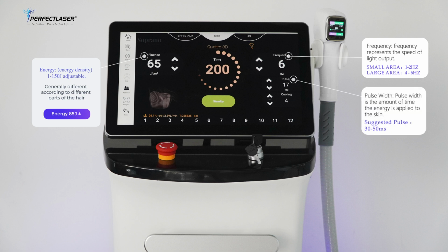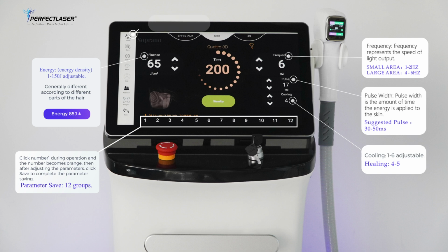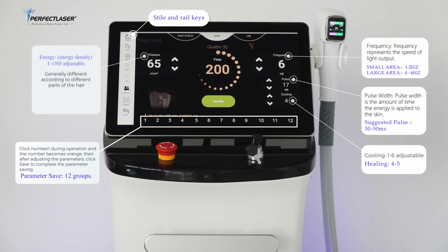Pulse width is the time of the energy effect on the skin. For treatment, use a pulse width of 30 to 50 milliseconds. The cooling system can improve the degree of comfort during the operation; use cooling level 4 to 5, and 12 groups of treatment parameters. Parameters can be saved, using the function keys on the left side.